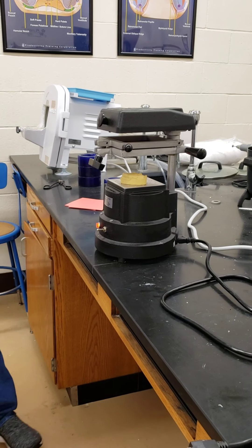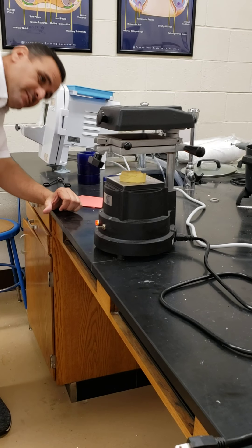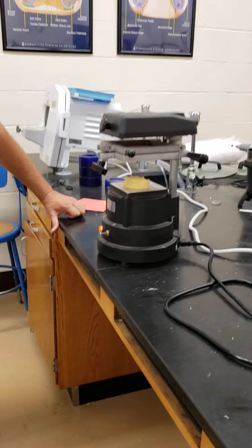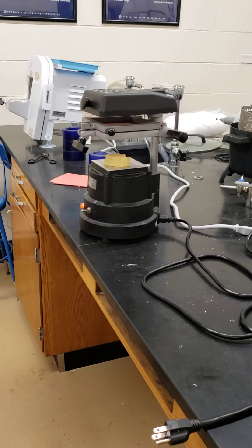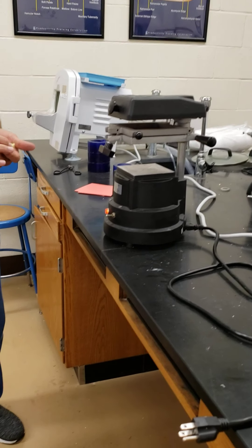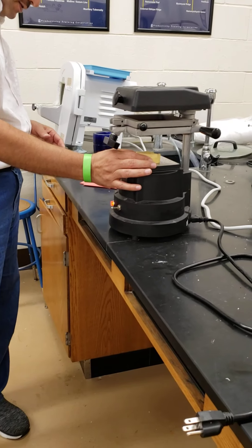Sometimes you can smell it melting. It's melting — it will bulge. Get it all the way down, and at the same time you can smell it. Some people use Vaseline on it so it will be easier to remove, but I think this one is easier without it.